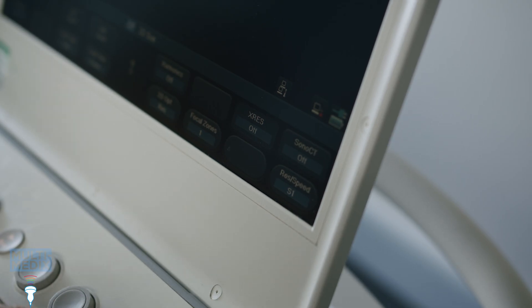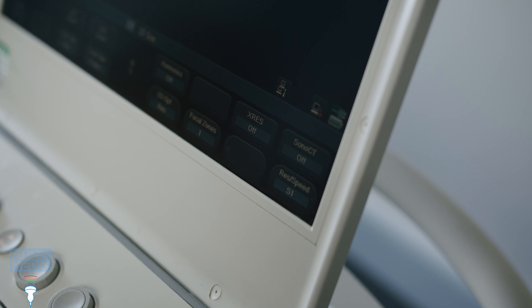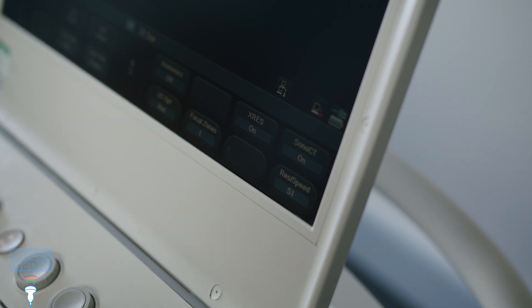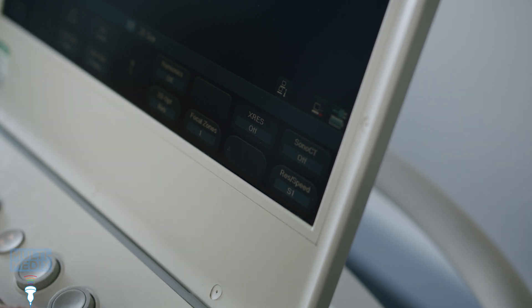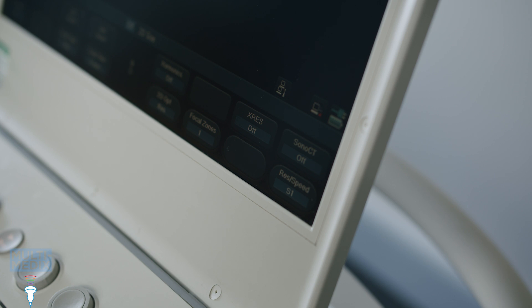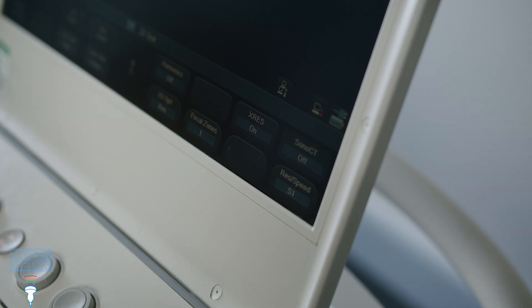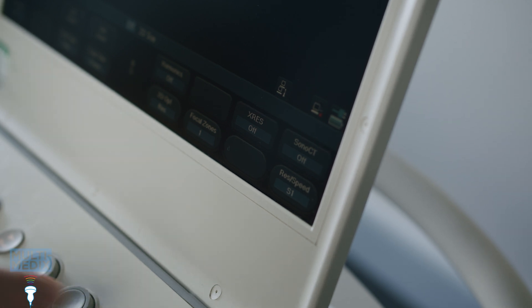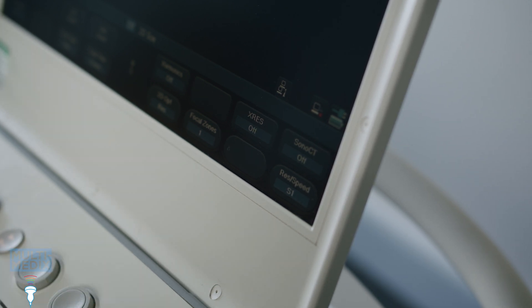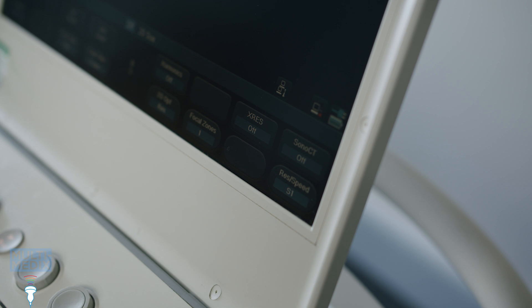Now I'm turning off the controls that might mask non-uniformities: compounding, advanced processing, automatic gain and automatic image optimisation that might work against me when I alter other controls.